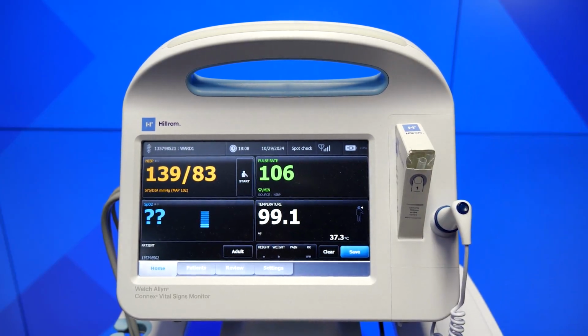The SureTemp Plus technology in our temperature probe contains a preheated filament that reduces the time to take a reading by bringing the probe to body temperature prior to measurement. The SureTemp thermometer can also be used to obtain axillary and rectal temperatures. For rectal temperature measurements, a different probe and probe well is required.